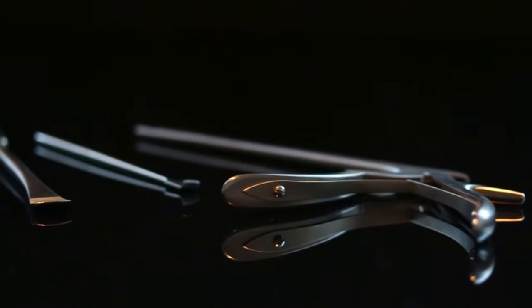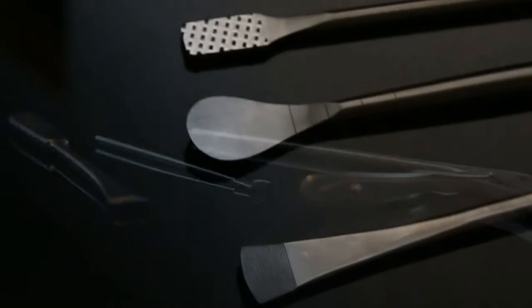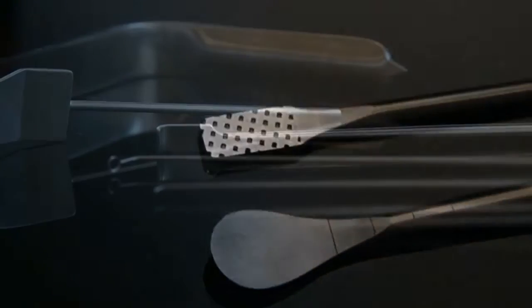Over the last 40 years, Logan Instruments has become a premier manufacturer of hand-held neurosurgical, orthopedic, and spinal surgical instruments.